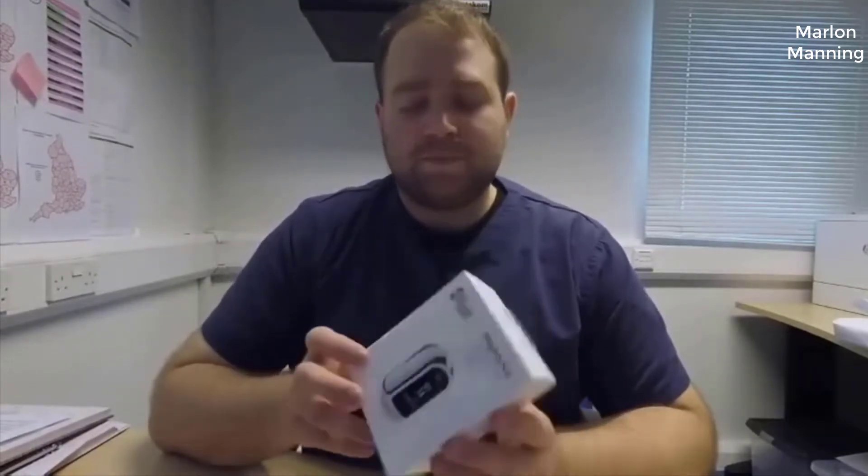Welcome to another EVA equipment video review. Today we start with a question: how many times have you dreamed to get rid of all these cables on your anesthesia station? Some companies are heading towards that direction, including Masimo, with their relatively new Masimo MightySat pulse oximeter. I've been asked by a couple of people to review this device because even though it's not designed to be used in animals, it's so small, so lightweight, so portable, and it has Bluetooth, that I'm pretty sure it's going to find a place in some people's equipment.